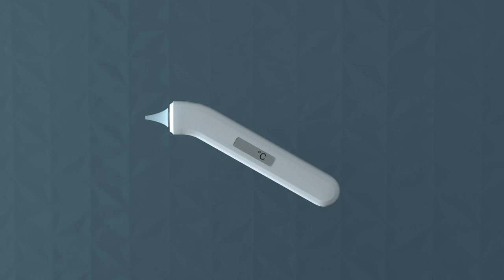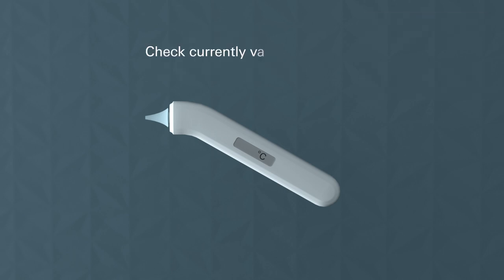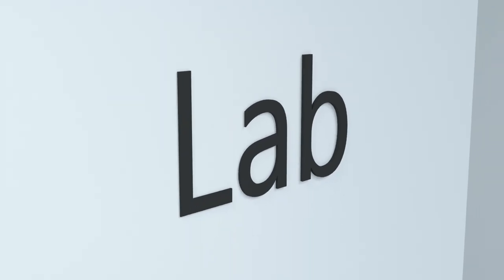The procedures described here are in accordance with the applicable ISO and ASTM standards. However, please check the compliance of your procedures with the currently valid versions of these documents. Let's move to the laboratory.